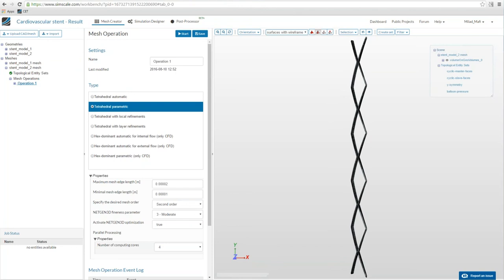Aristity asks if we can use hexahedral meshes instead of tetrahedral. Unfortunately that's not possible — hex-dominant mesh operations are only available for CFD and fluid flow simulations. For structural simulations you have to use tetrahedral elements — which I will show more of next week. Anwar asks about blood pressure after stent integration and whether it leads to further deformation — that's the aim: the stent reduces blood pressure because you now have a larger vessel diameter.